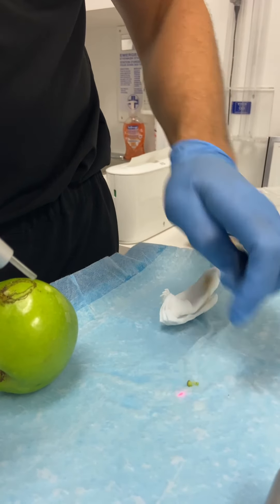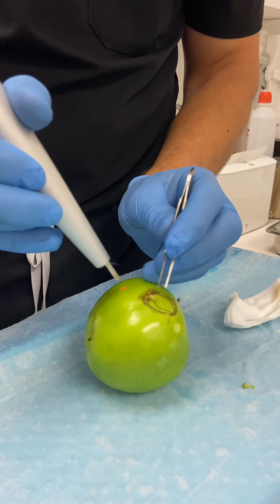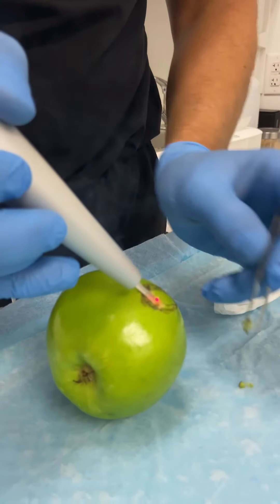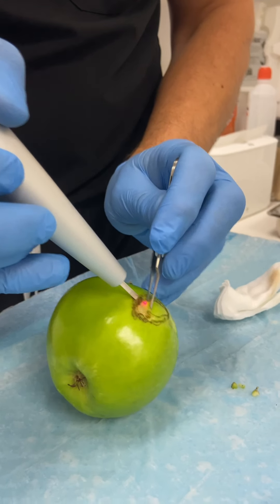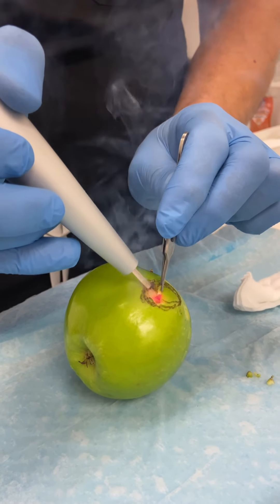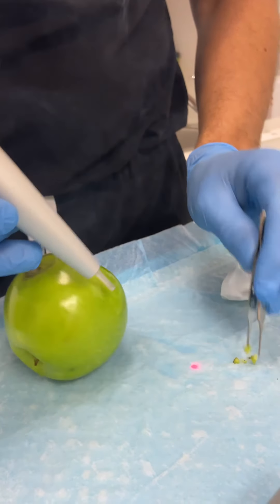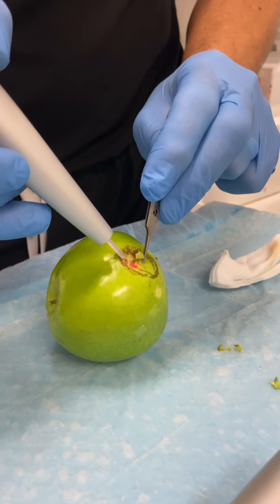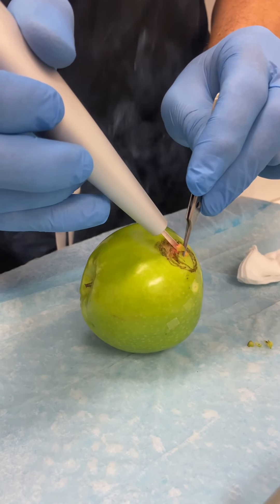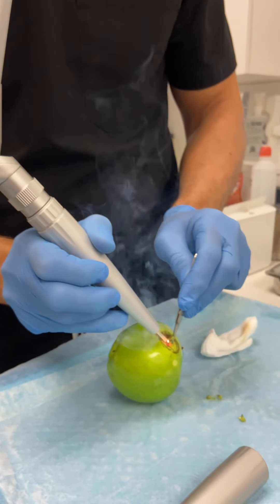You can see I'm cutting, starting to cut pieces off. Human tissue obviously has more elastin in it, so it's more elastic and doesn't just tear like this. This classic incision mode for the CO2 laser is used in cancer surgery in hospitals to remove tongue-based tumors and laryngeal tumors, because you can fire this light down a microscope and get to spaces in the throat that you can't access otherwise — without having to split someone's jaw in half to get to the back of the throat. The advances in cancer surgery all use CO2 laser.